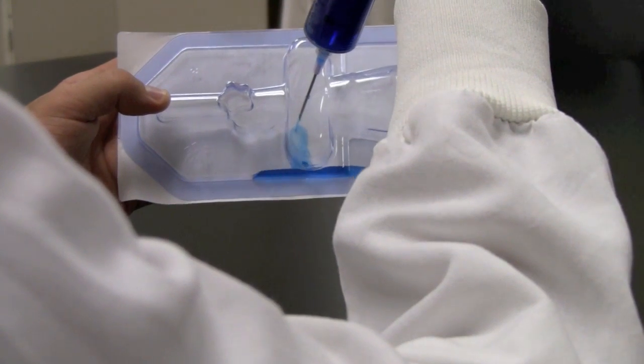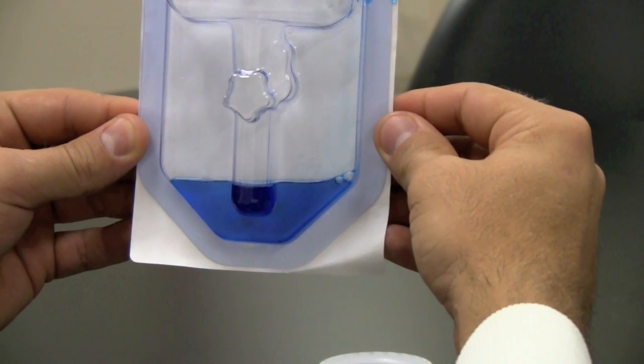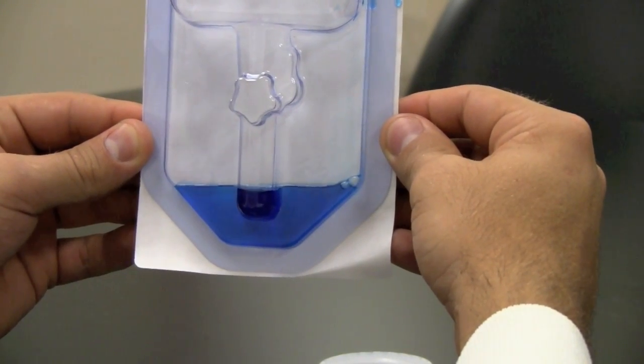Integrity consists of dye migration and bubble emission. Bubble emission is very similar to the burst test except it's performed underwater — we increase the pressure in the package looking for bubbles coming from a single location. The dye migration test works by injecting dye into the center of the pouch and letting the solution sit on the inside of the seal. After about 10 seconds, you can see if there's any penetration through the seal to determine a pass or fail.